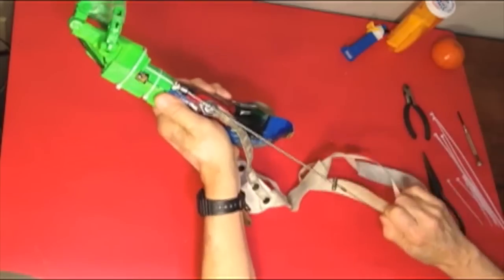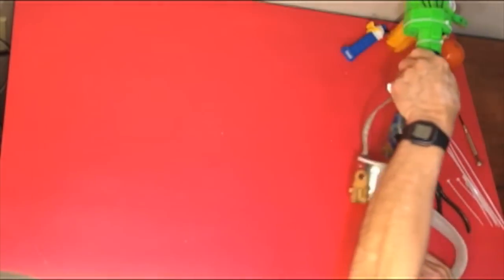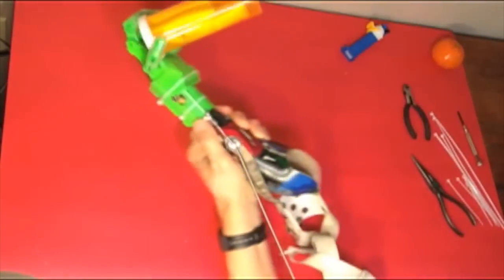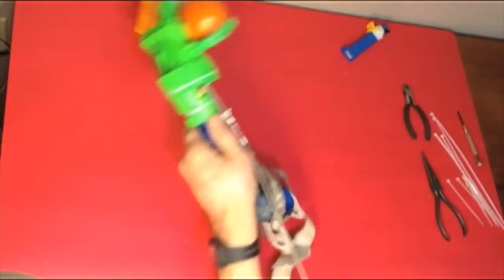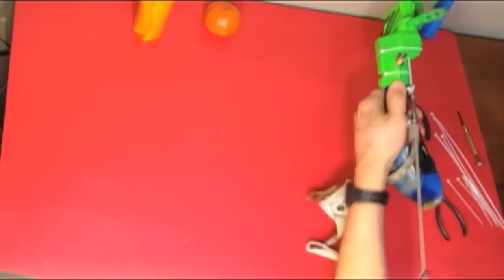Here's the Enable Raptor hand used as a terminal device on a traditional below-elbow prosthesis that was custom-made for a child named Wilhay.